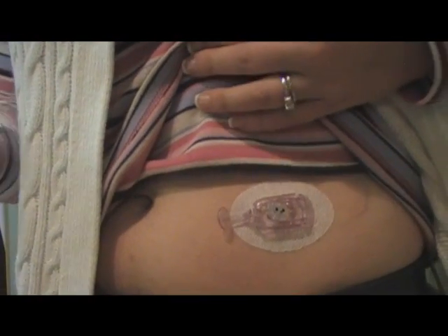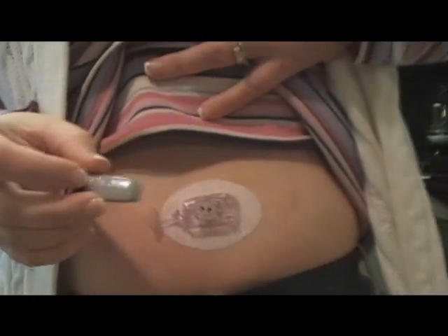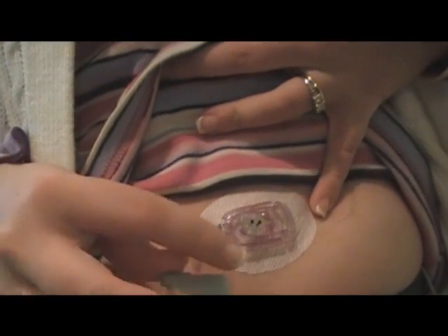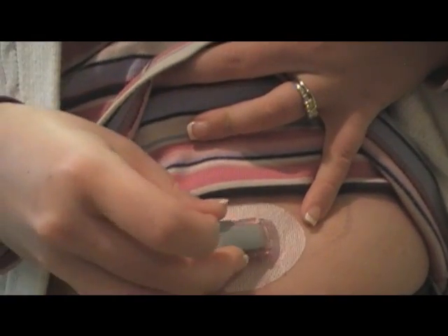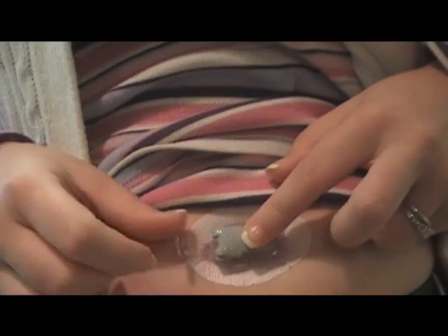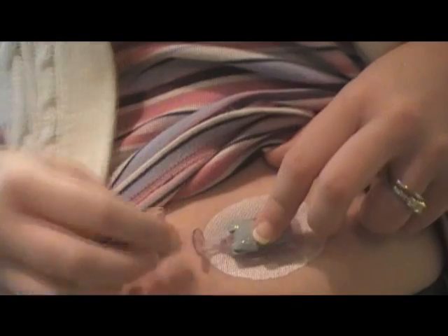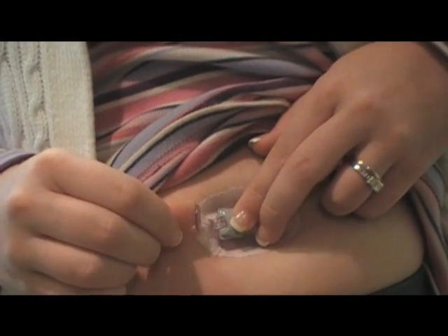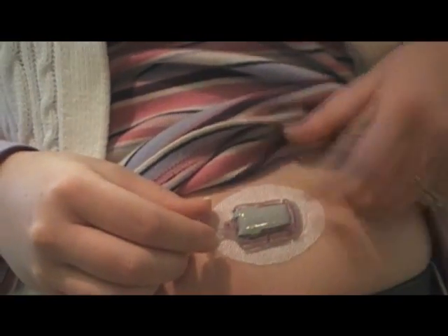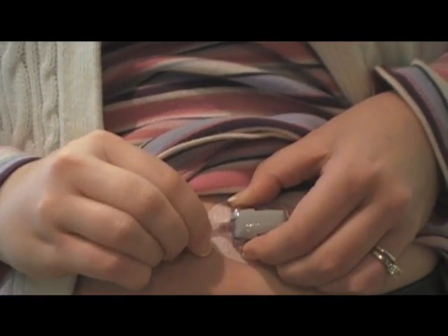Back to this part — all you do is there's that little lip right there. You put it in, push it down, and just kind of hold it there. This tab is the part that you use to click this part in. And it snapped two times. Then you just hold it and twist it off. And that's it for that part.